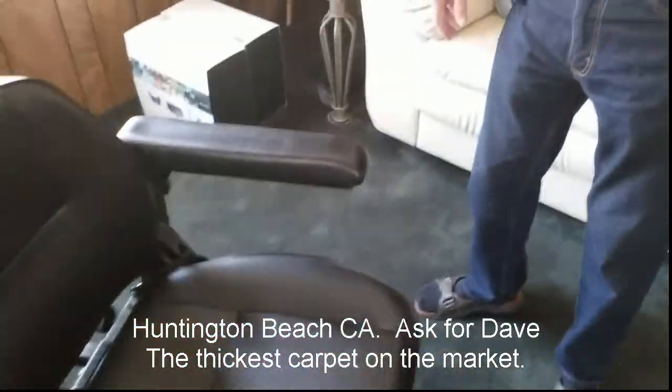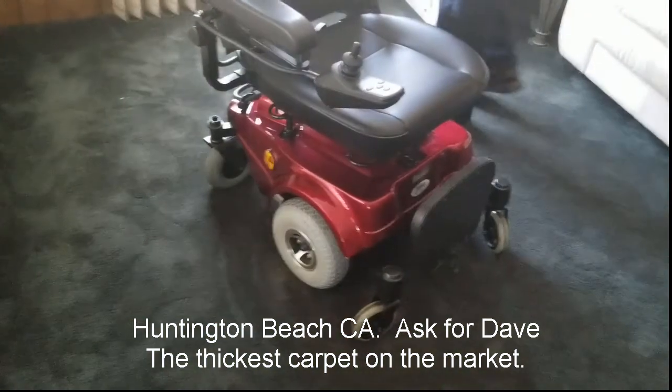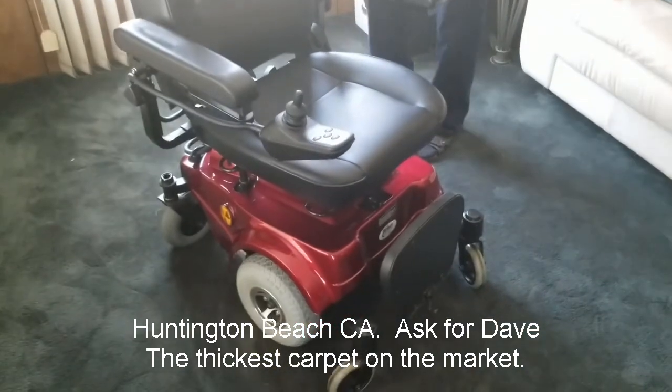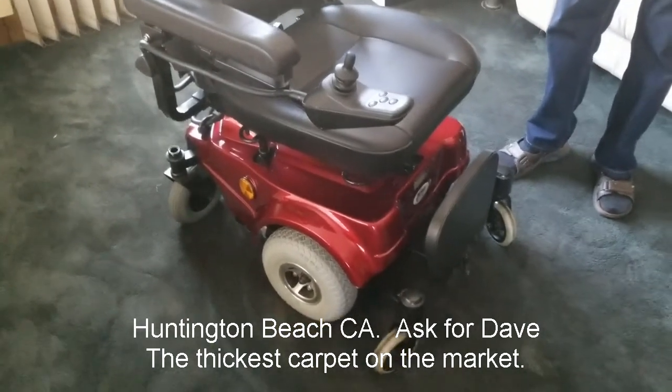As far as the controls, they can go on either arm — on this arm, or you can switch it over to the other arm. It's a deluxe model. And like I say, it's strictly for in-house. It's not meant to be on the road, although it was on the road for less than a month or so — she did have some road time, but very little.